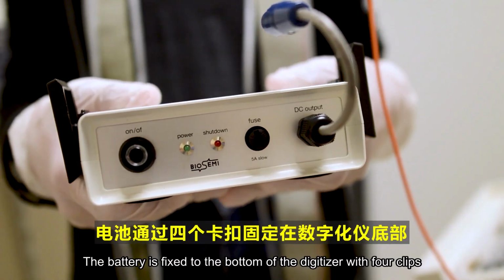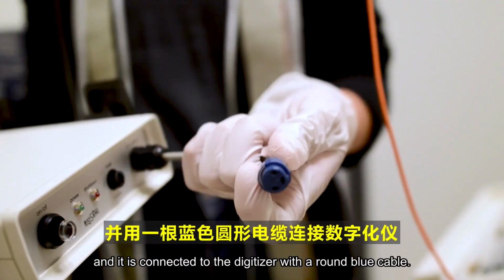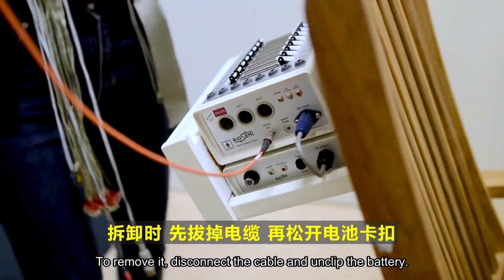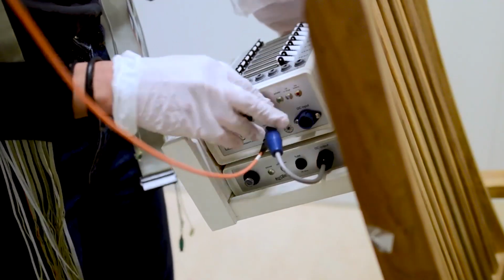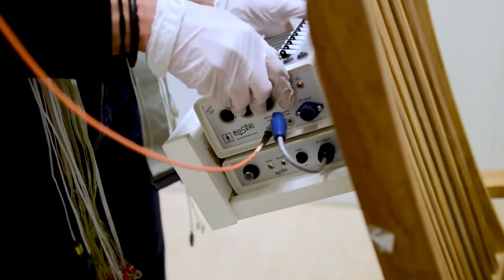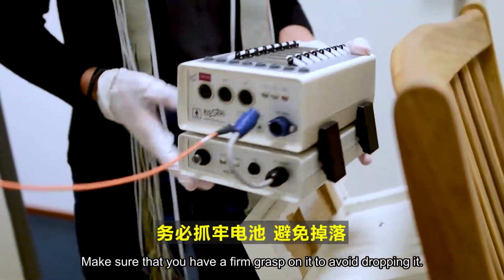The battery is fixed to the bottom of the digitizer with 4 clips, and it is connected to the digitizer with a round blue cable. To remove it, disconnect the cable and unclip the battery. Make sure that you have a firm grasp on it to avoid dropping it.